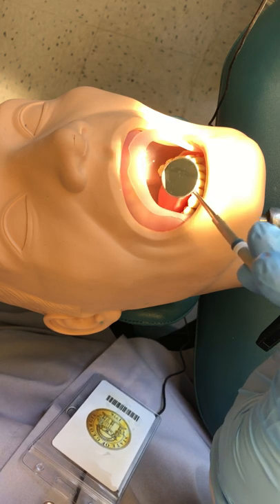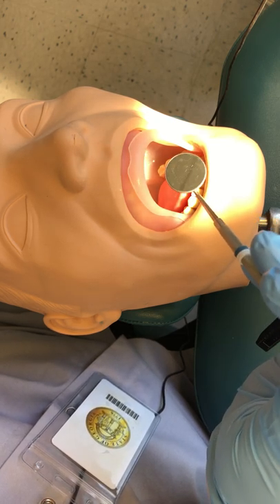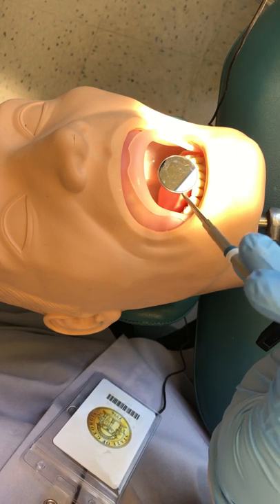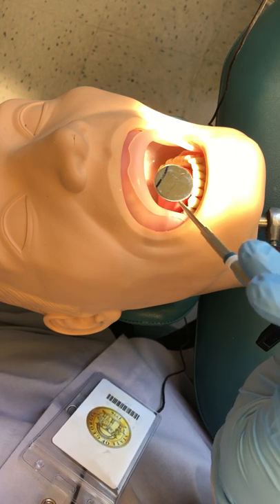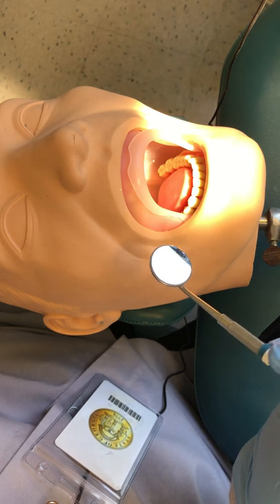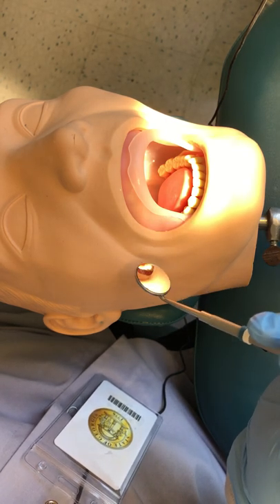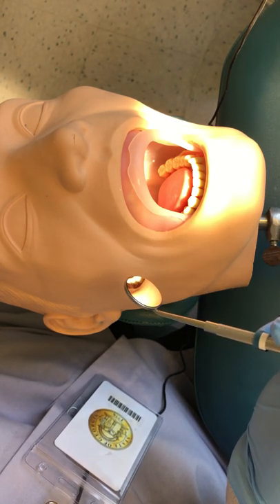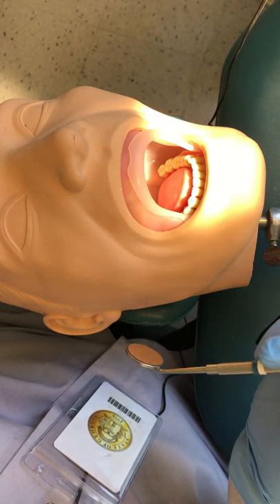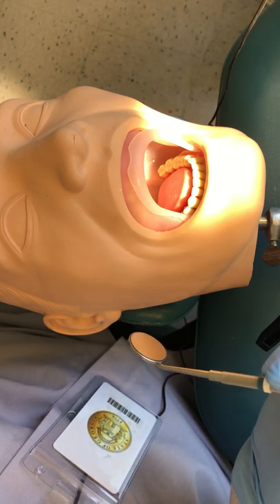There is a fourth use that dental assistants typically don't use. It's reserved for hygienists and dentists, and that's trans illumination. That's when you use the reflected light to illuminate the teeth, and this could potentially help diagnose cavities or cracks in the teeth.